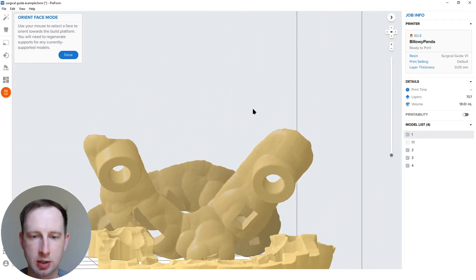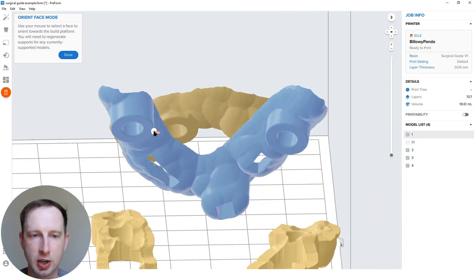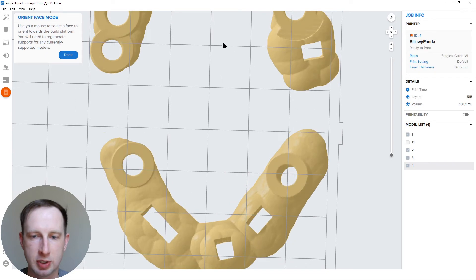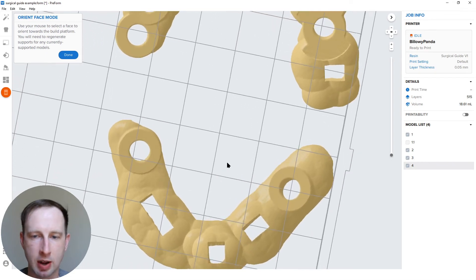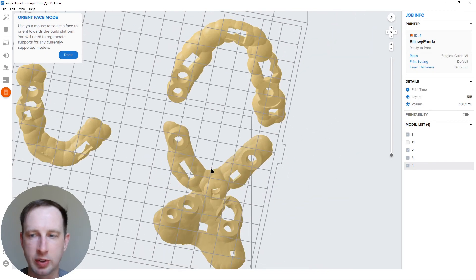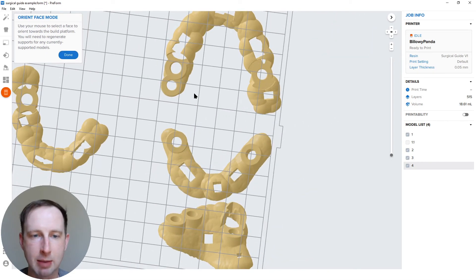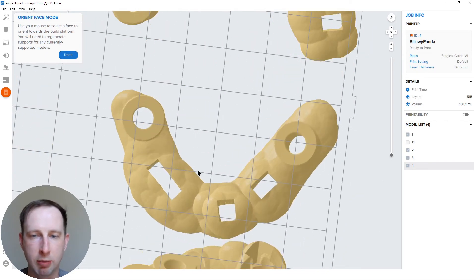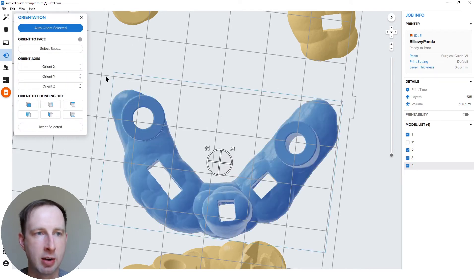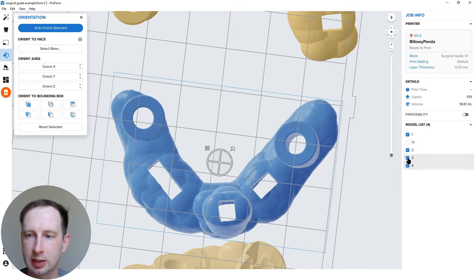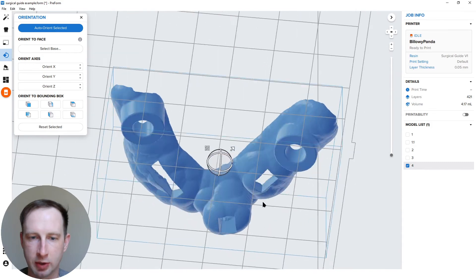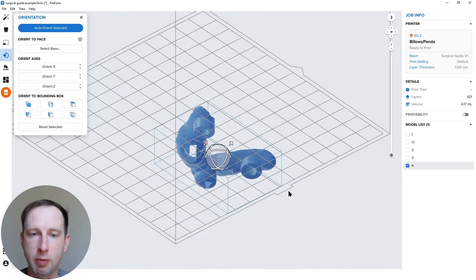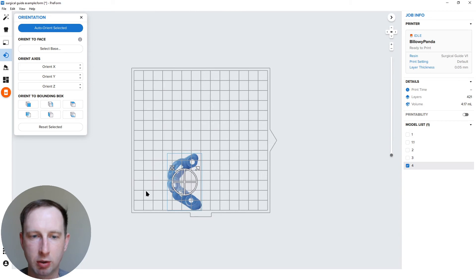The next one here is the two site implant guide here. I believe this one's really simple. And then the last one I have is a little trickier. Oh no, this is the tricky one. Okay. So I've snapped it down. Before I go any further, I'm going to go back out of my select base mode because I want to isolate this one. I want to turn off these other models so we can see everything clearly. Okay.